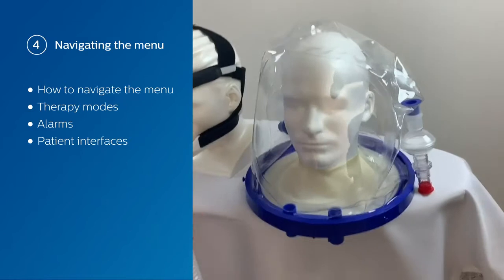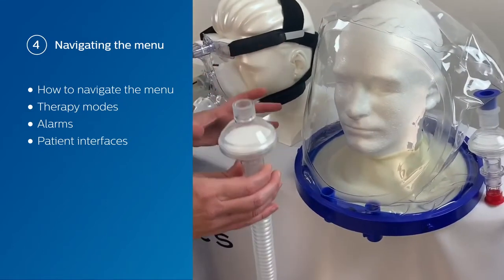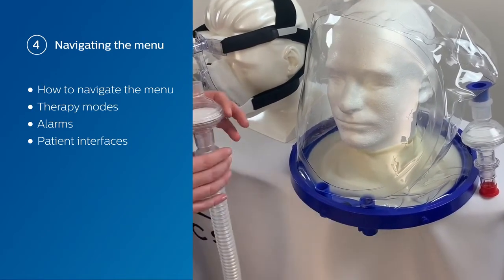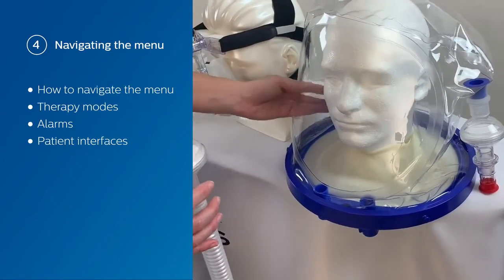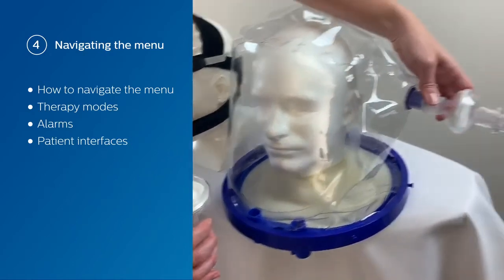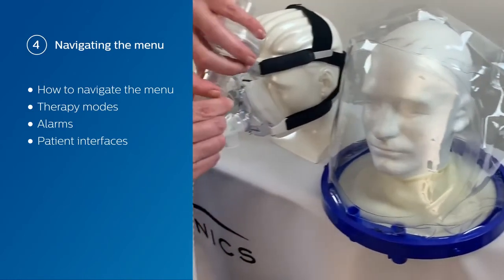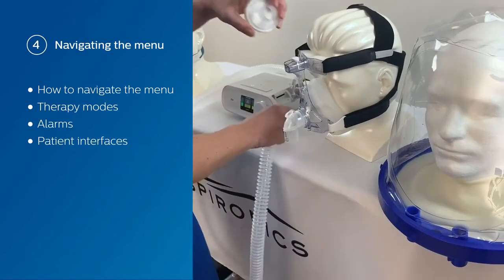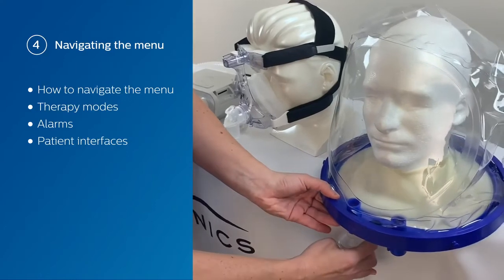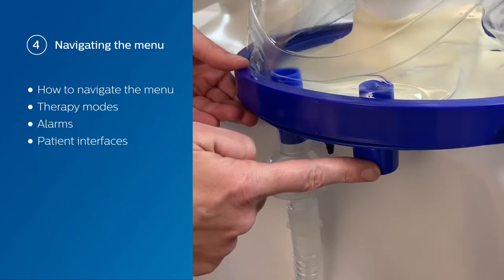When you're looking at the helmet setup, you want to refer to the manufacturer's guidelines as there are numerous different setups. With this one, you're going to see that there are two ports at the bottom, one on the side that's a one-way valve, and the exhalation set up on the side. Since we've got the exhalation on the side, you're going to see the filter, the exhalation, and the cap. What we're going to do is remove the exhalation from the tubing, keep our bacterial filter, and connect that underneath. Since there are so many ports, you have the ability to insert your oxygen in one of these other ports.